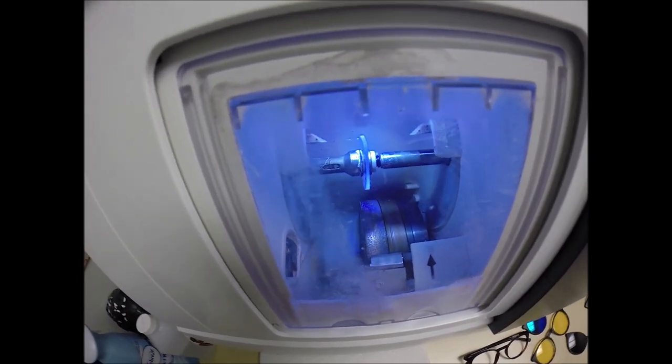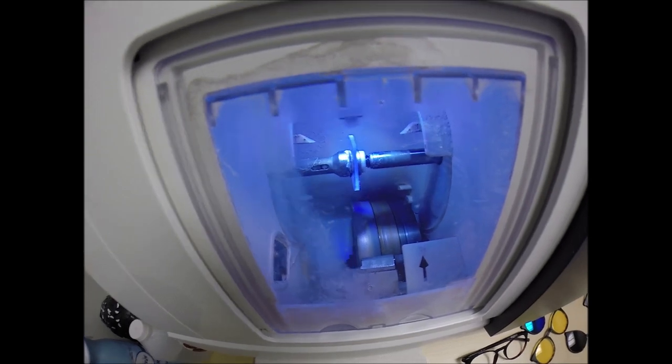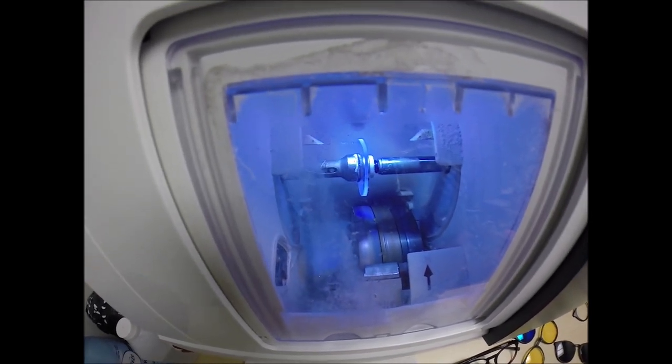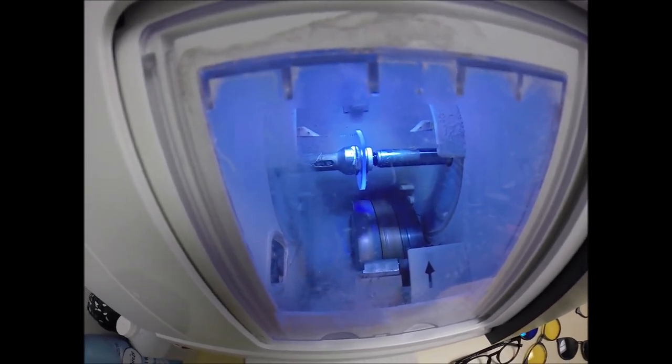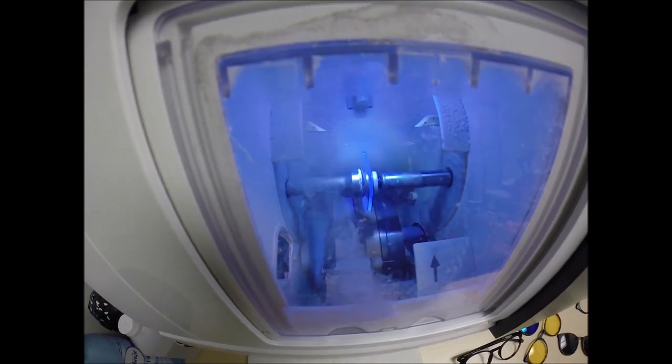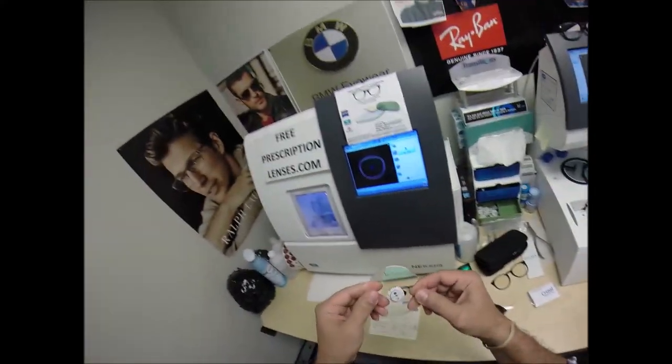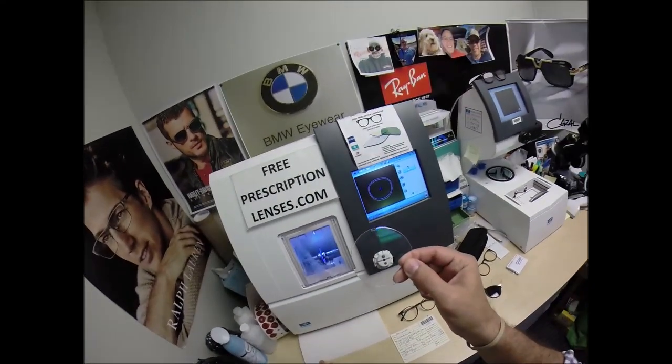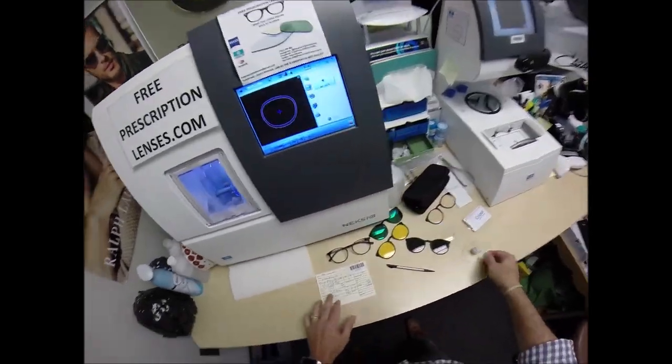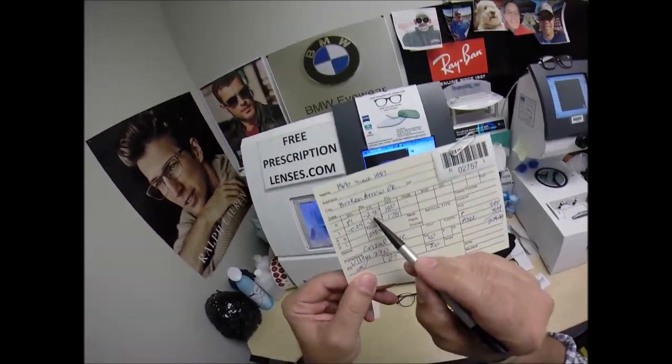We know what the sun's harmful ultraviolet rays can do to your skin. Your eyes are eight times more sensitive, so it's like permanent sunscreen for your eyes. Unlike the lotions, creams, and sprays that have to be reapplied every couple hours when you're in direct exposure to the sun. They're in Broken Arrow, Oklahoma. What a name. Now if you notice, your lens is completely flat around the edges, just like a nickel. If I were to take it out now, it would stand up on the counter. It's now getting this V-shaped bevel applied to it.